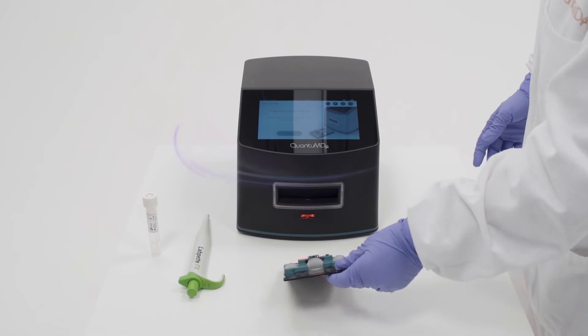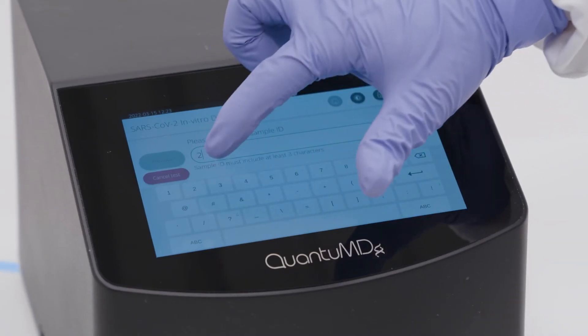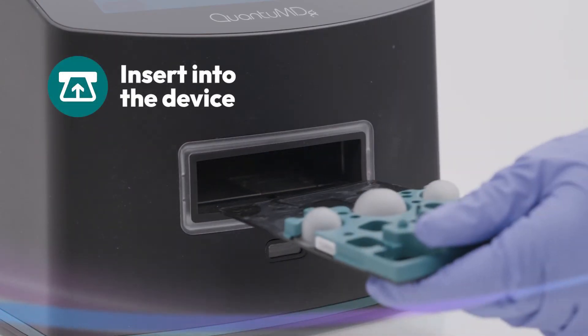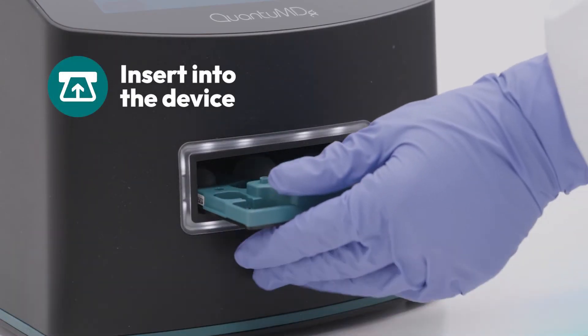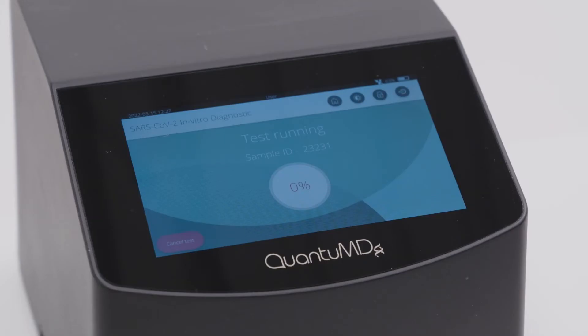Scan the barcode on the cassette label. Enter the sample ID and patient information. Insert the test cassette into the QPOC. Wait 30 minutes.